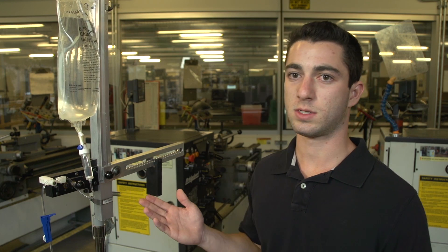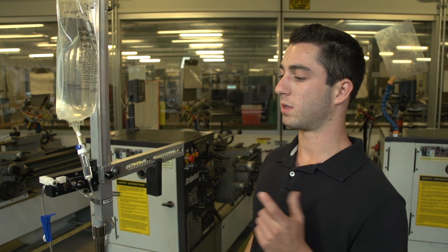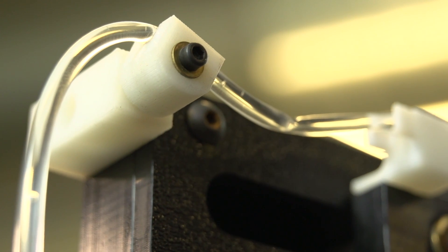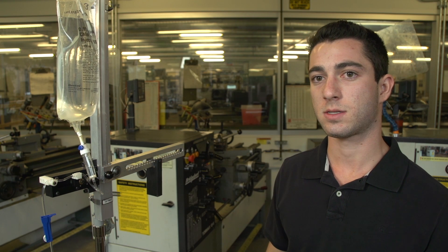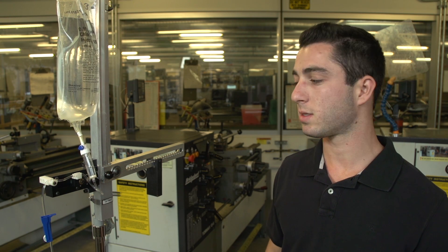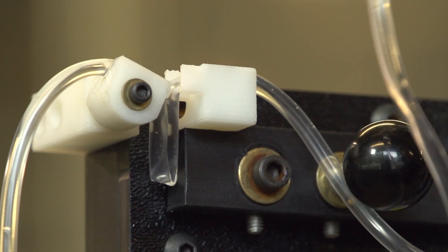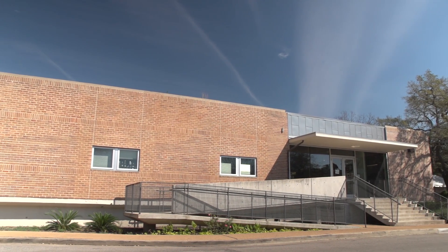Moving the counterweight inward will prime the system for triggering. At this point you'll take two fingers and pinch the triggering pin in the triggering mechanism. Once the bag loses enough mass to correspond to the desired volume to be dispensed, the lower lever arm will equilibrate again, setting off the triggering system and pinching the tubing in a V shape.